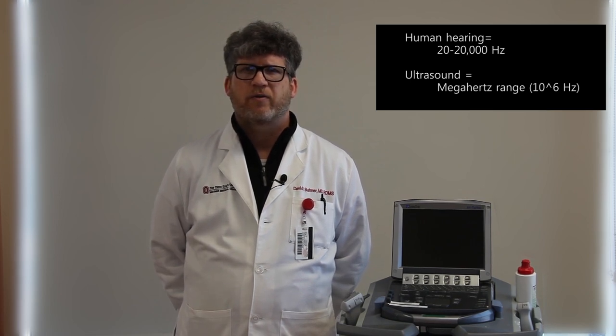Human hearing can detect mechanical or sound waves along the 20 to 20,000 Hz spectrum. Ultrasound uses mechanical waves with frequencies in the megahertz range. Remember that mega simply means 10 to the 6. The probe receives an electrical signal from the ultrasound machine and uses piezoelectric crystals to turn the electrical energy into mechanical waves as ultrasound. The waves are propagated into any medium the probe is applied to — in our case, a patient.